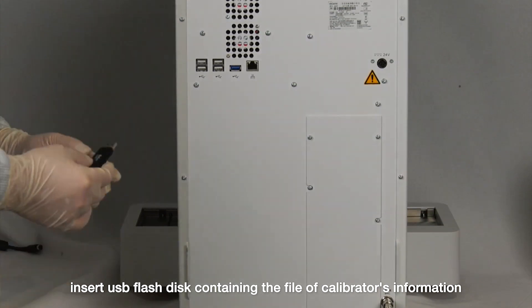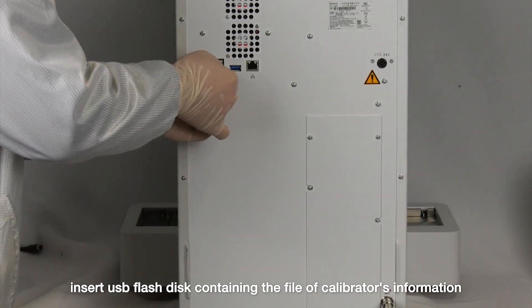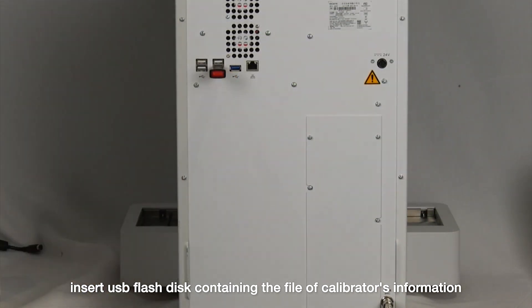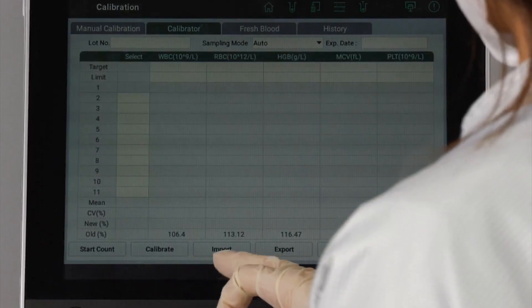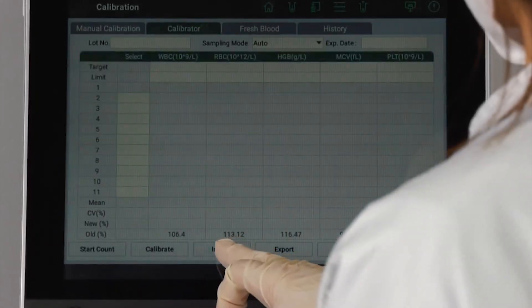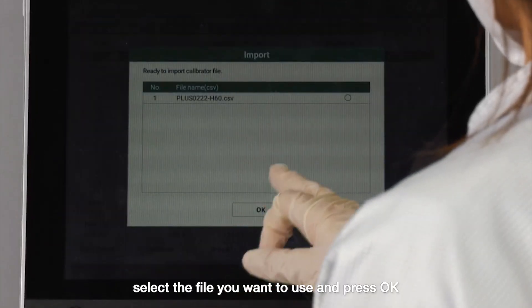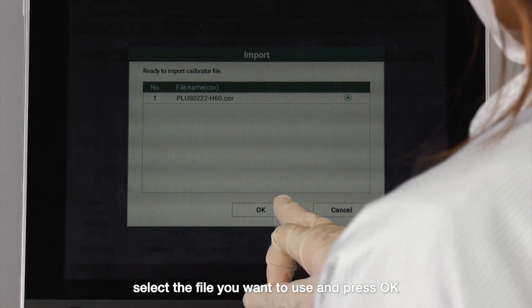Insert a USB flash disk containing the calibrator's information file under the specified directory. Press the import button, select the file you want to use, and press OK.